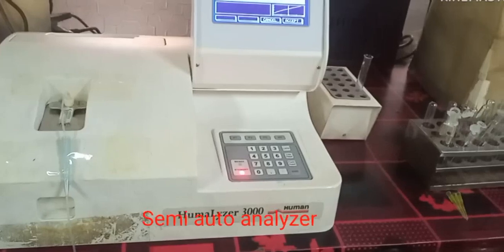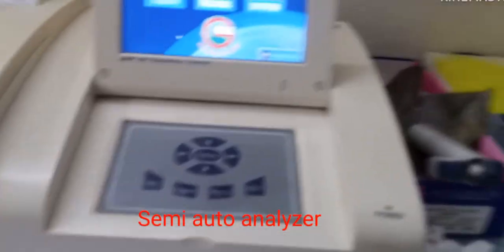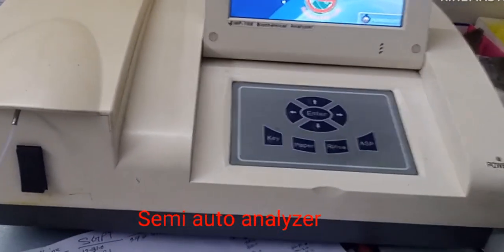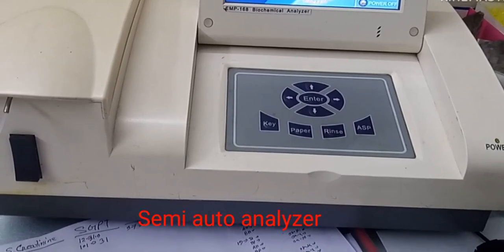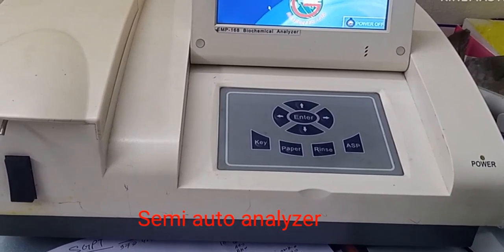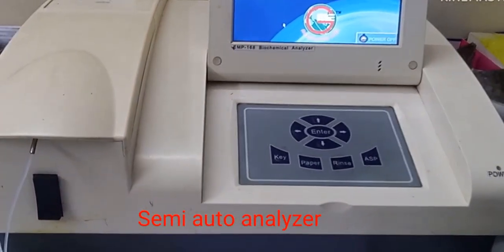This instrument's name is semi-auto analyzer. It is used for measuring the elements of blood and body fluid semi-automatically.